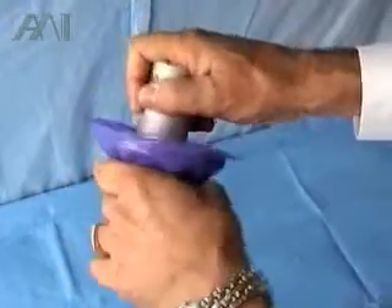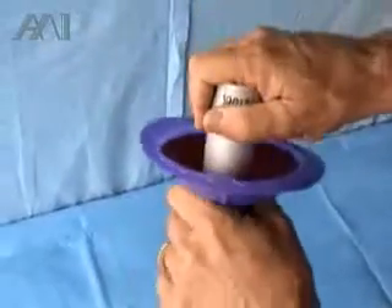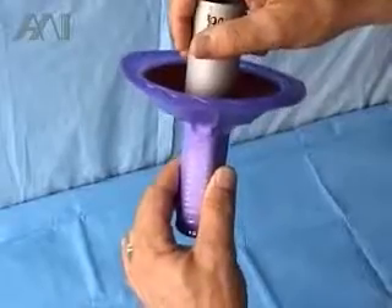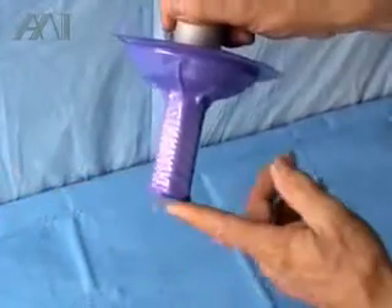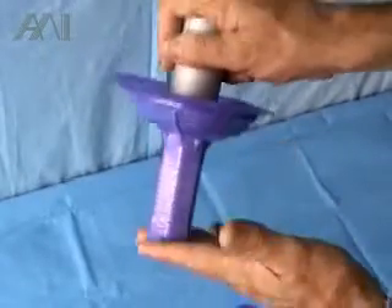You push that vacuum to snap the cover flange over the red flange of the handle, giving it more force to make sure it doesn't come off. The last thing is you basically evacuate the air and create vacuum here. This is termed burping the cover.